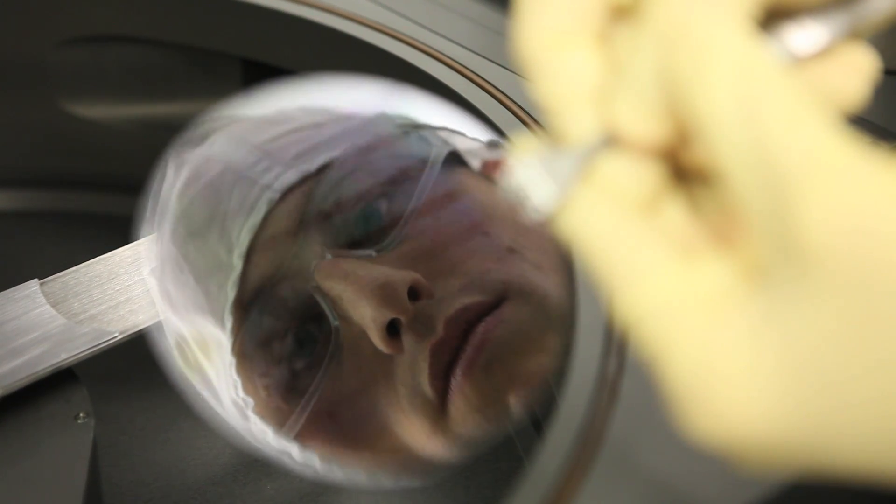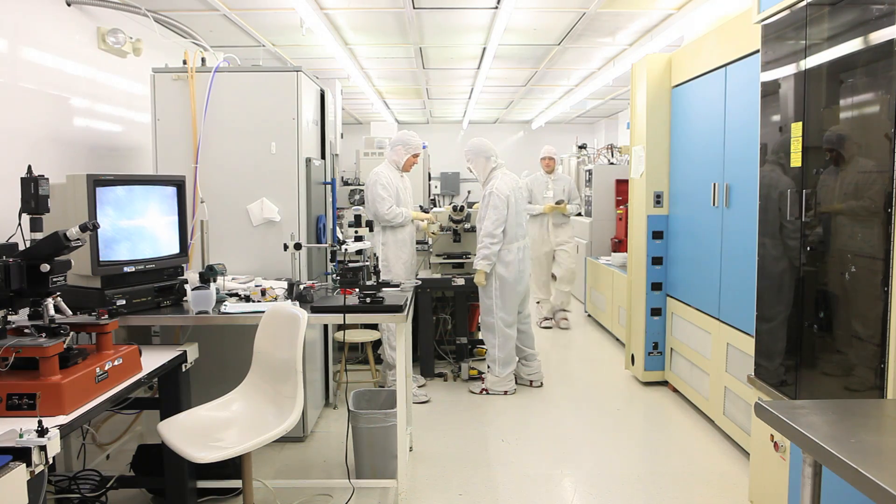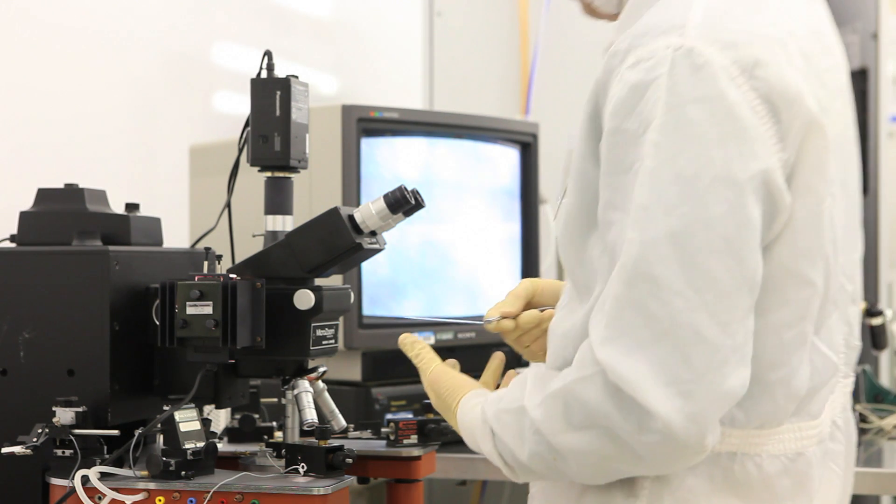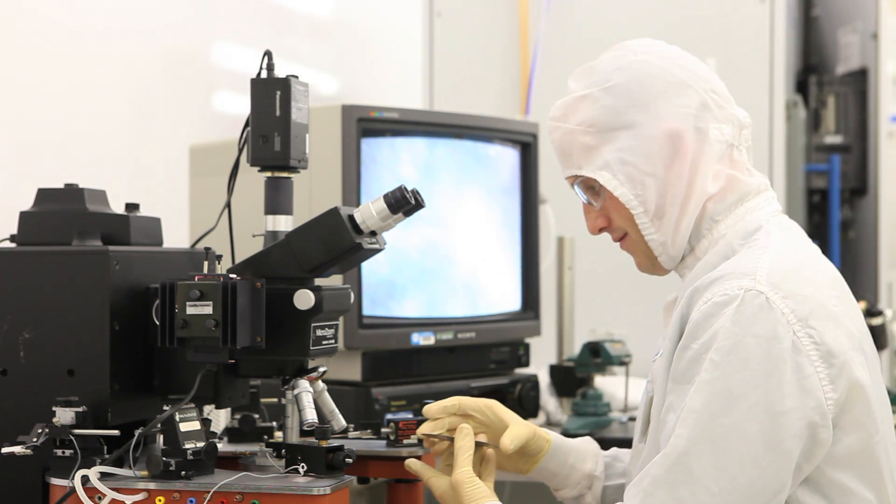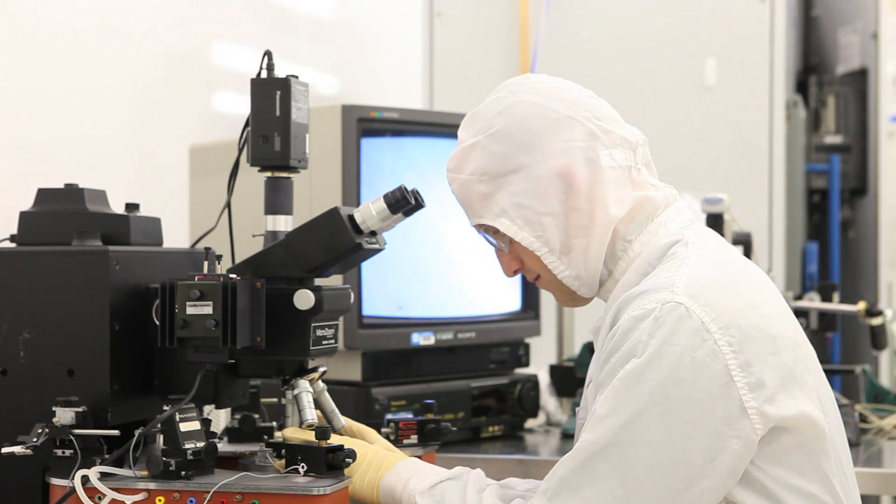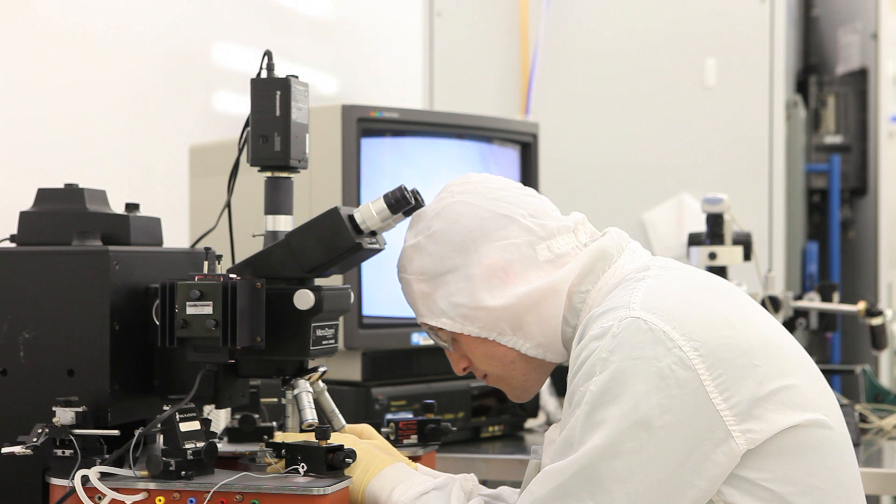So if we can size select these proteins, we can tell you what's going on inside your body. In the future, we hope that they'll be used for disease diagnosis, that you'll go to the doctor's office and he'll very quickly put some blood on one of these chips and tell you what is inside of it.